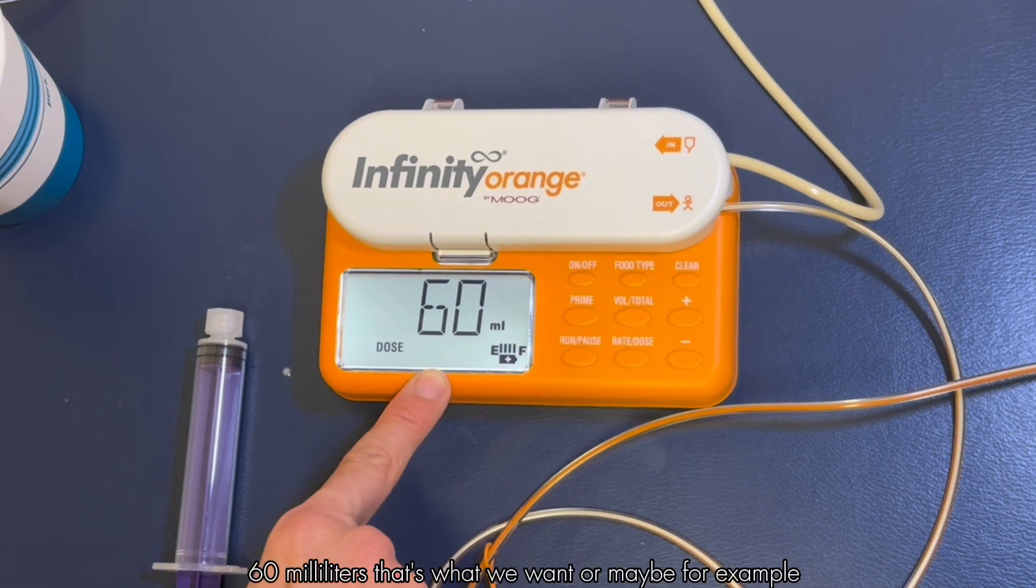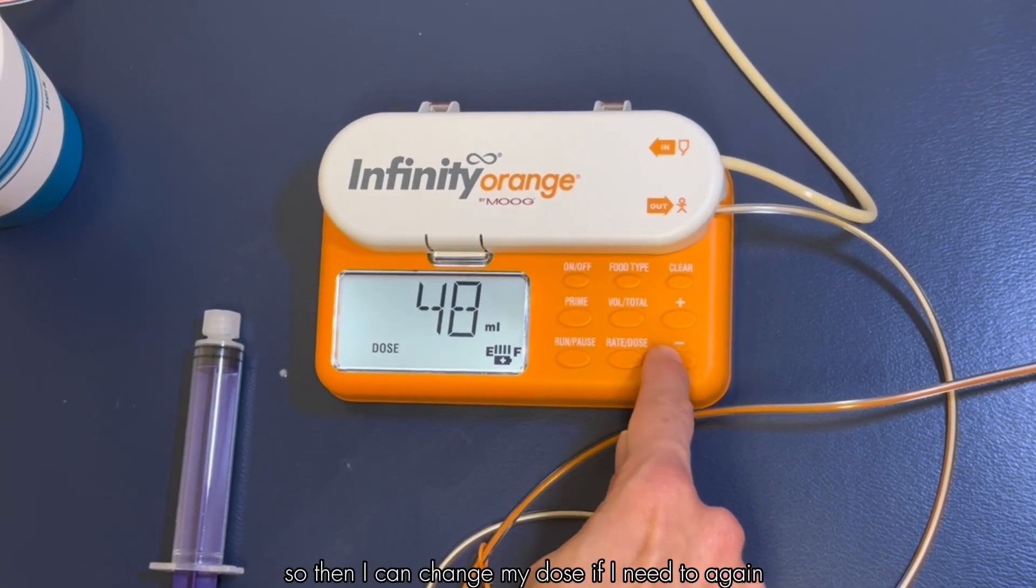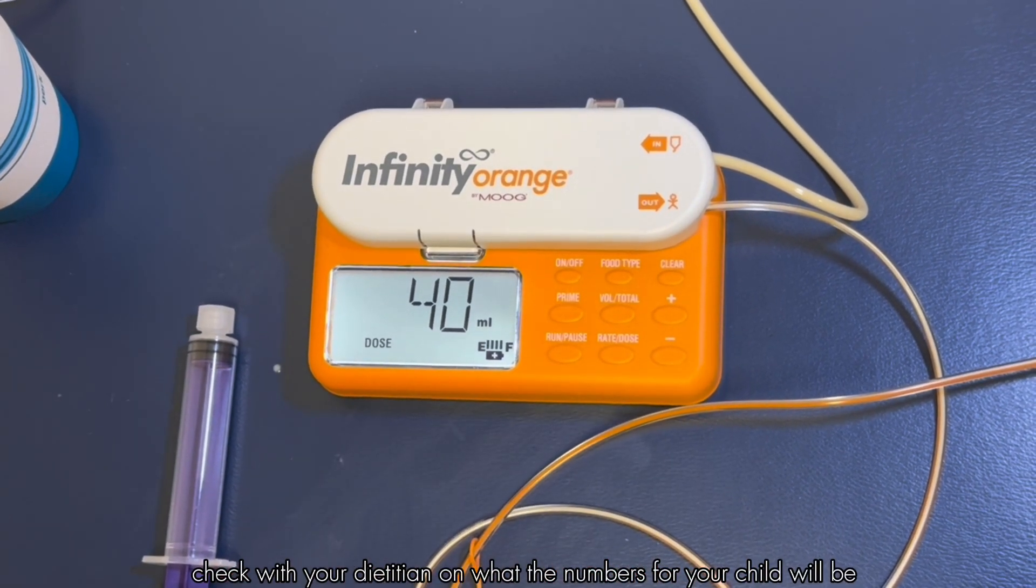Or maybe for example kiddo drank 20 milliliters, so I only need my dose to be 40. Then I can change my dose if I need to. Check with your dietician on what the numbers for your child will be.